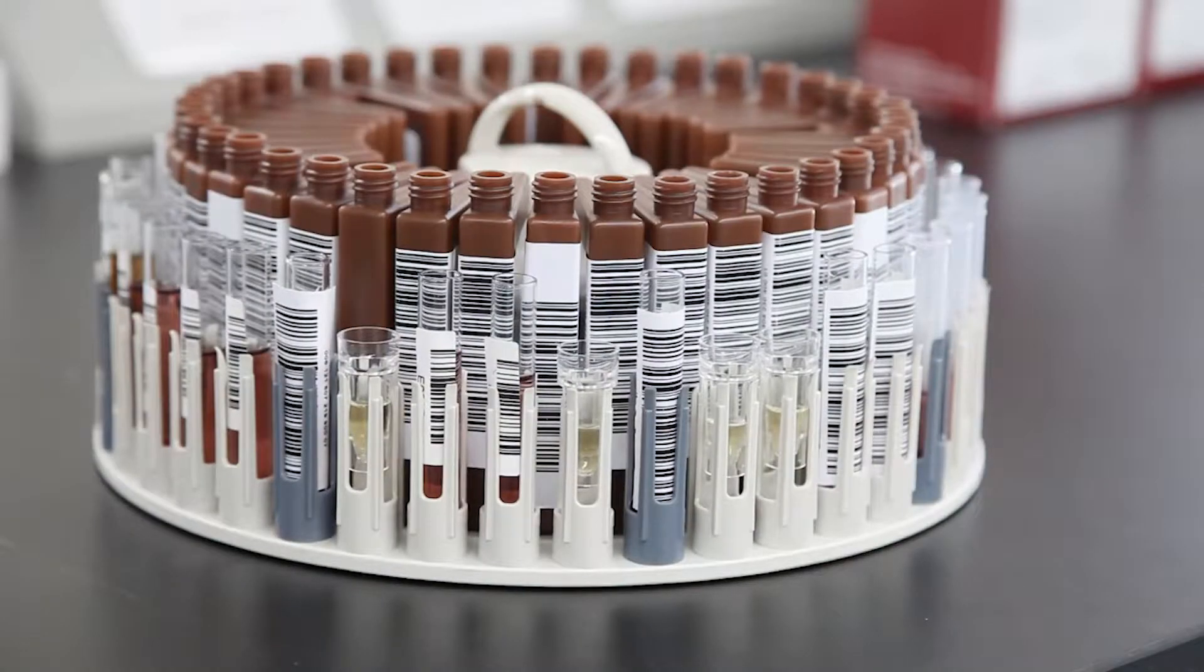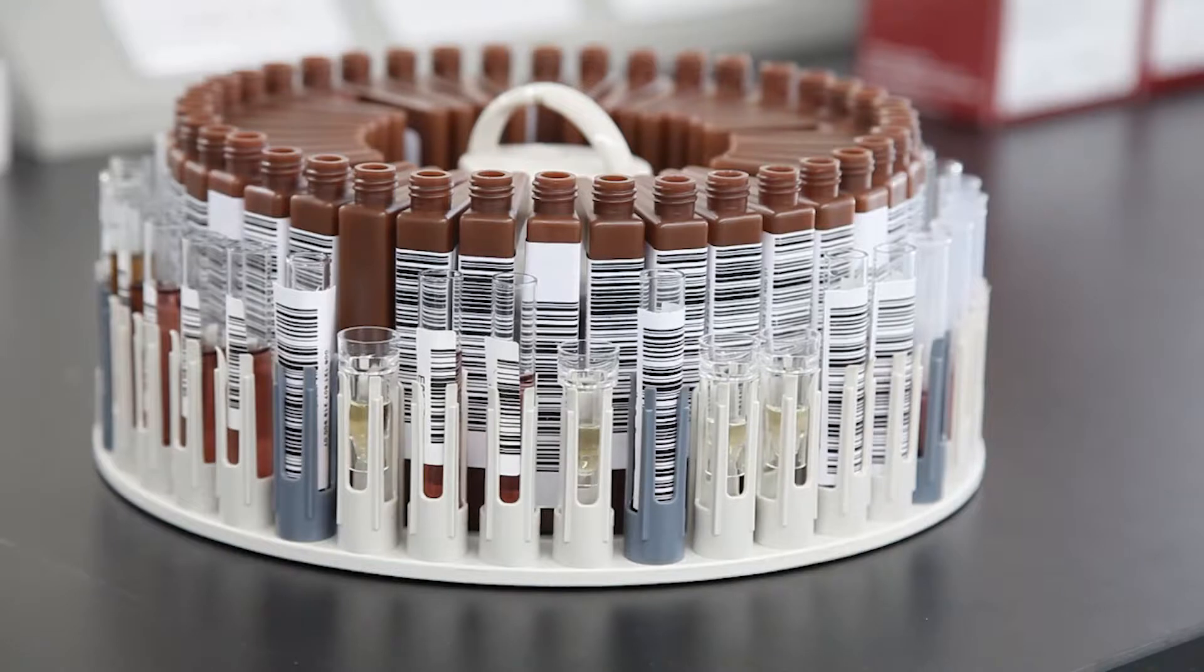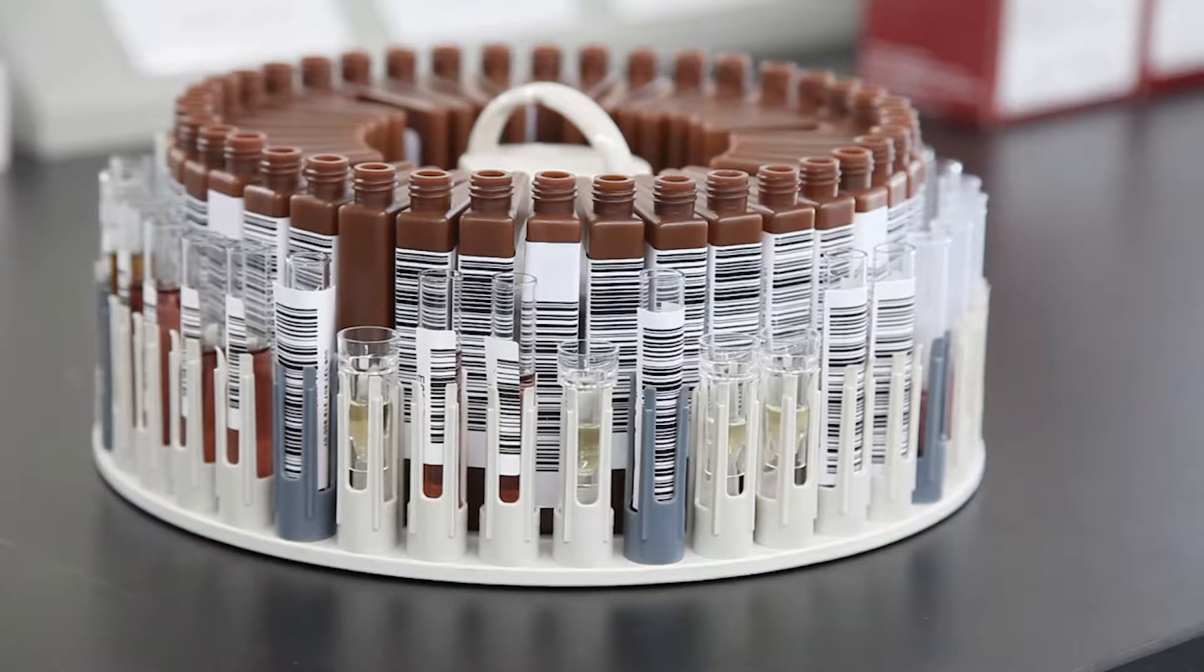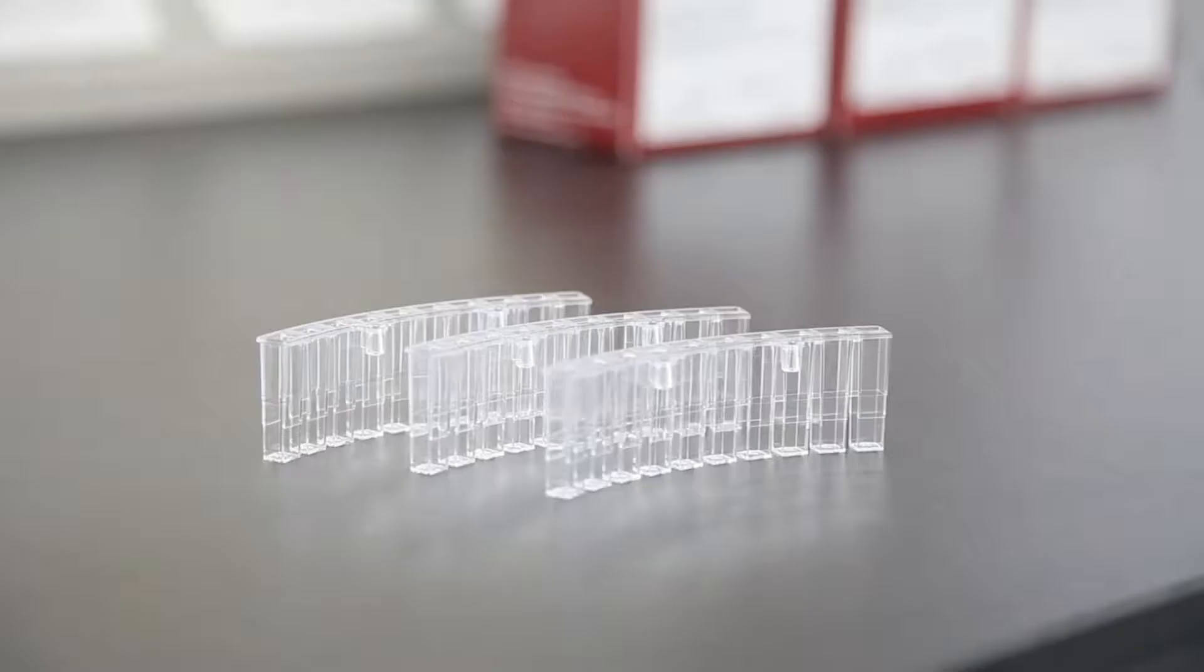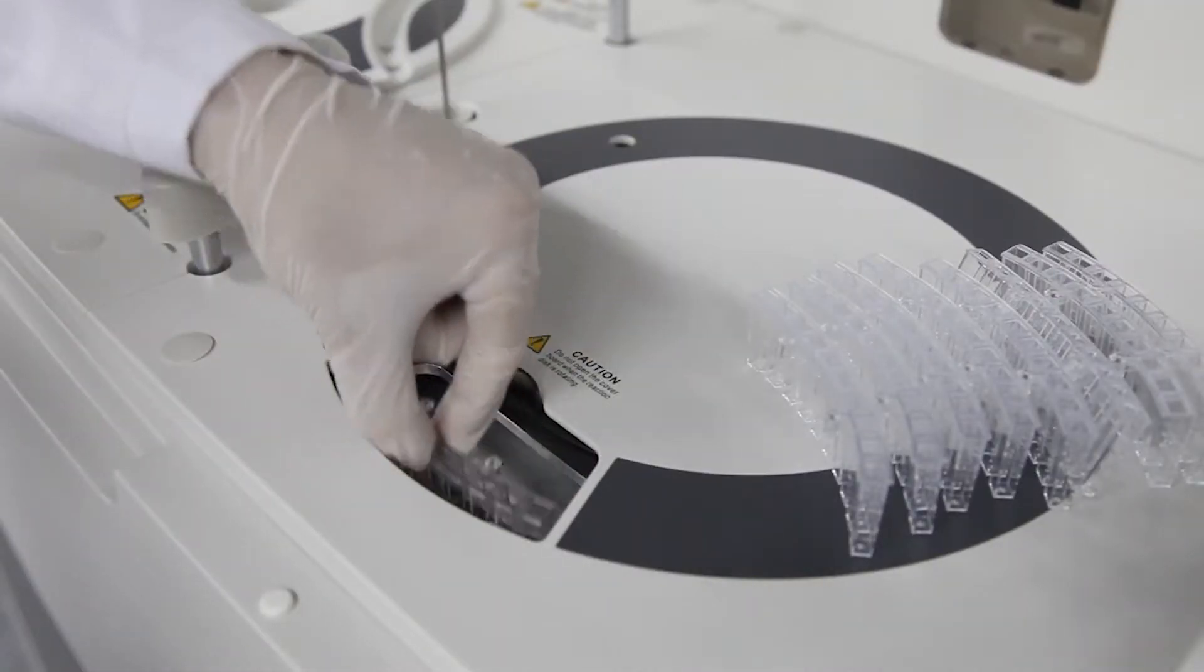The sample ring accommodates primary collection tubes, sample aliquot tubes, and sample insert cups. The reaction carousel holds up to 80 high-quality disposable cuvettes, therefore eliminating the need for a water filtration system.